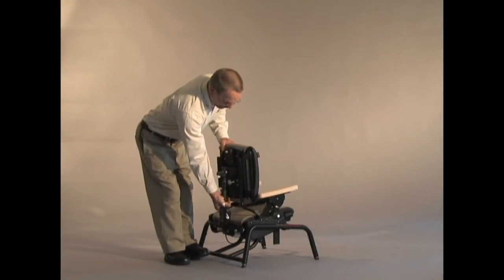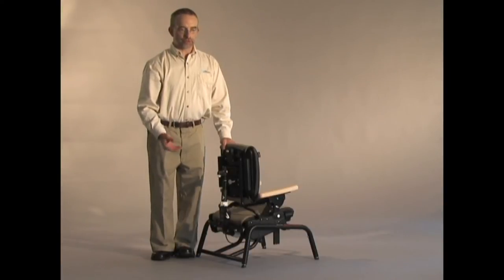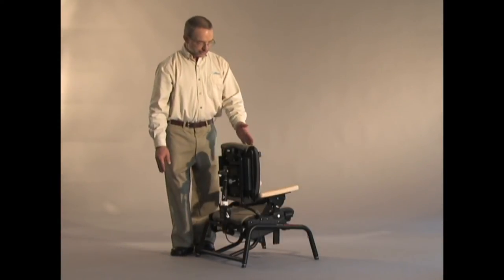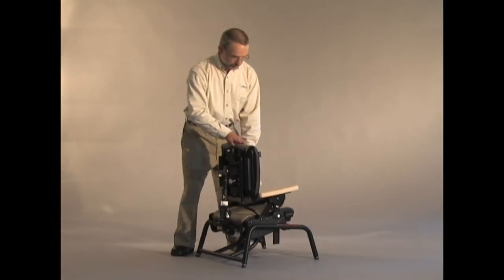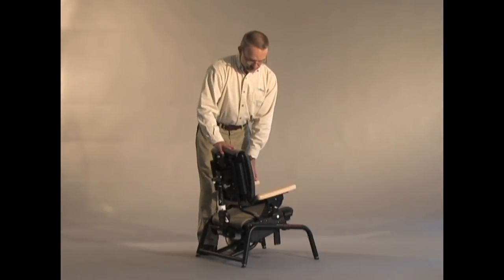This is very effective when you enable both springs to be compressed. We were working with one little girl named Christina, and she loved to rock in her chair. She hit a very gradual soothing rhythm when she was able to flex both the backrest and the seat. This was very effective.